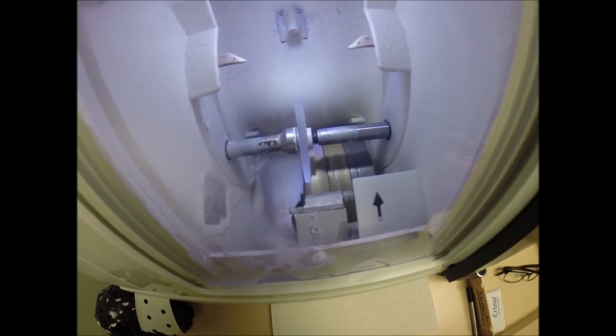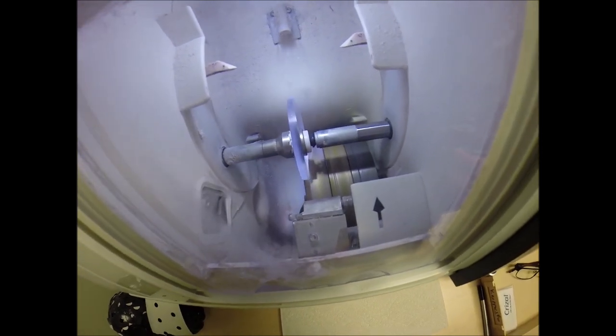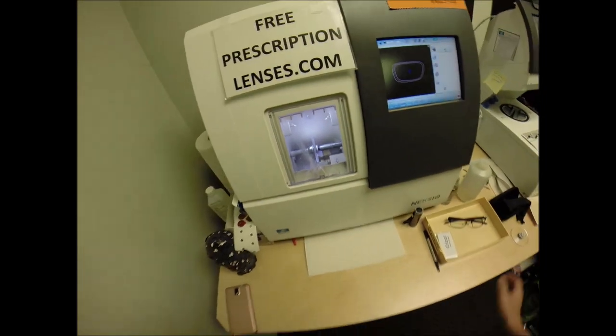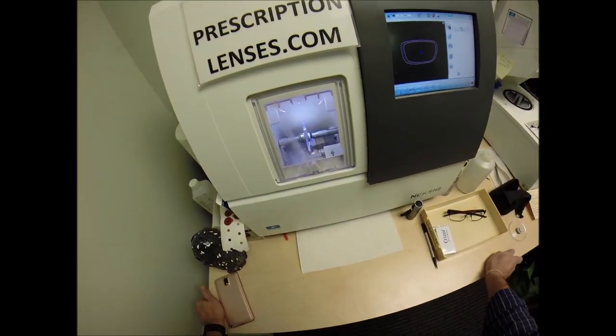I could move the bevel forwards or backwards. I know that looks opposite to you, but if I move the bevel backwards on the lens, it would force the lens forward, which I would never want to do. Or if I move the bevel forwards, it would move the lens back into the frame, but the computer is going to do all of that for me. That's what $40,000 buys you. Now, the light you see flickering in the background is water to catch the optical sawdust as the lens comes off the cutting wheel, which is spinning very fast.